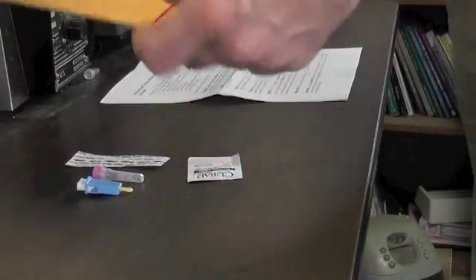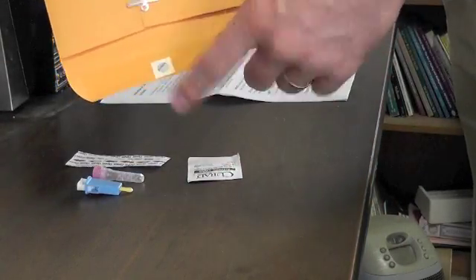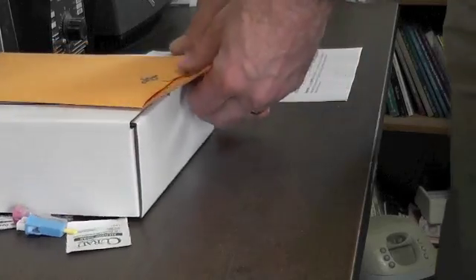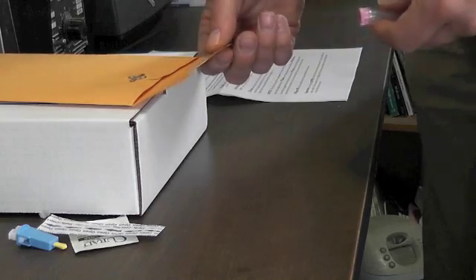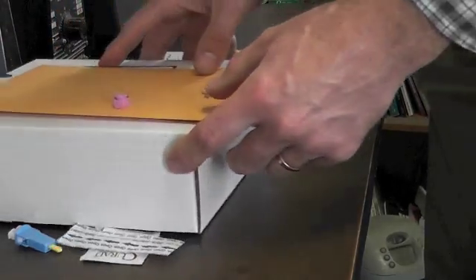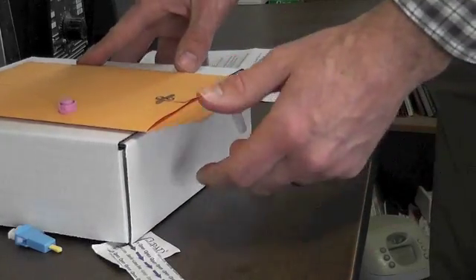This has a little hole in here. You can take a book or a box or something like that and set it up here. We can use that for staging our collection. I'm going to open this up, get the lid here, and set that right in there. That works really well.